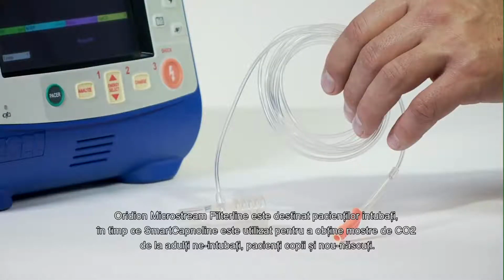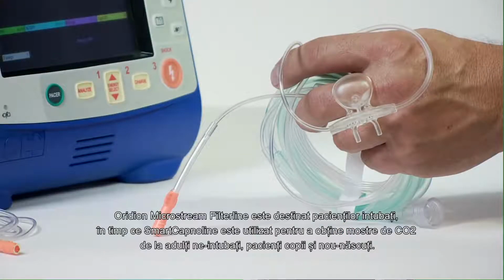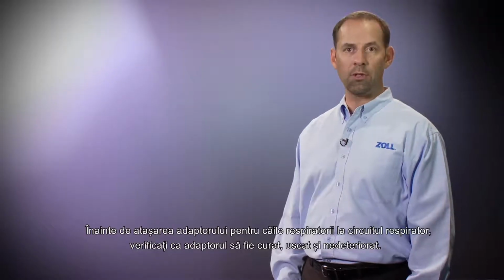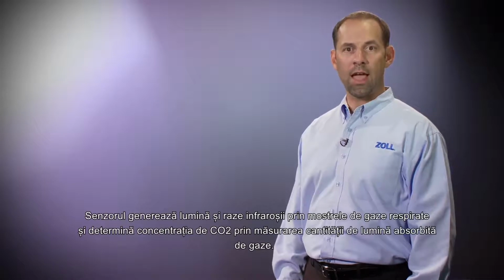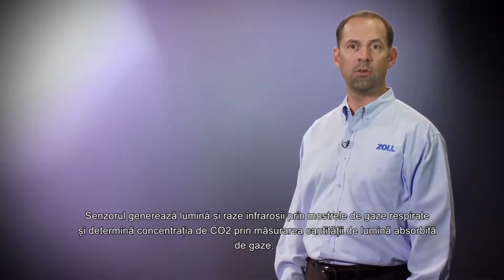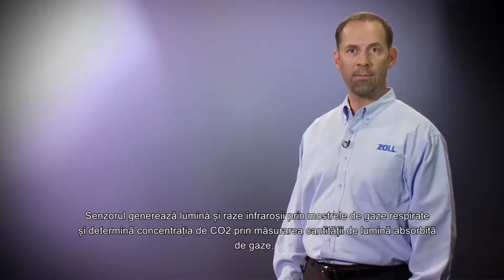The Oridion Microstream filter line is intended for intubated patients, while the smart Capno line is used to obtain CO2 samples from non-intubated adult, pediatric, and neonatal patients. Before attaching the airway adapter to the breathing circuit, verify that the adapter is clean, dry, and undamaged. Replace if necessary. The sensor generates infrared light and beams it through the sample breathing gases and determines CO2 concentration by measuring the amount of light absorbed by the gases.